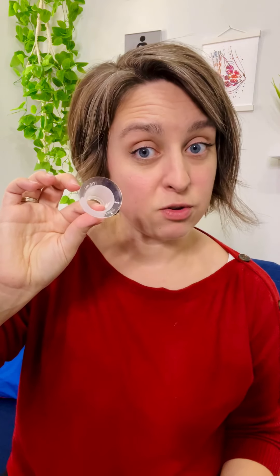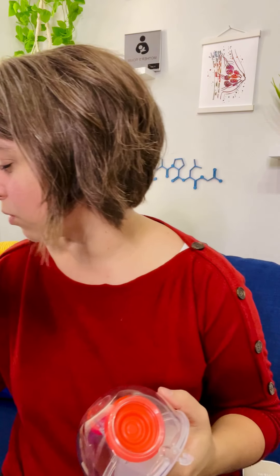It does come with a 28 millimeter flange, which is pretty big in my opinion. There's not a ton of moms pumping with 28s, and that is your only option for the moment. It does, however, come with a 25 millimeter insert that comes standard. So if you want to make it a 25 millimeter, you can. You can also order other sizes of inserts, but since the hole is 28 millimeters, you'll need to order them from Legendary Milk so they fit.